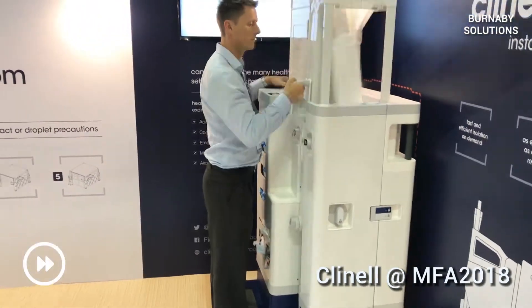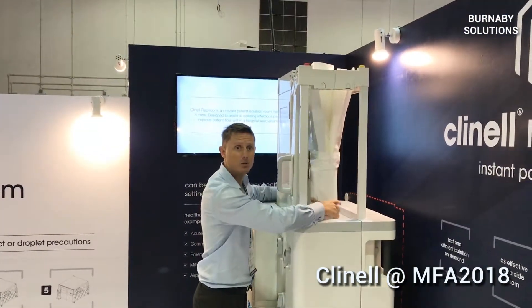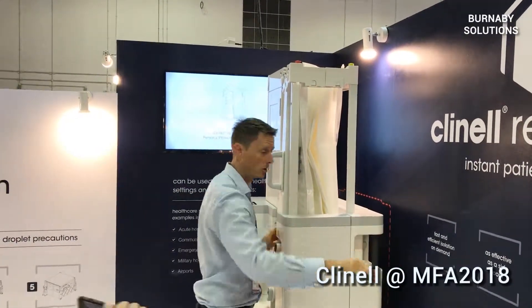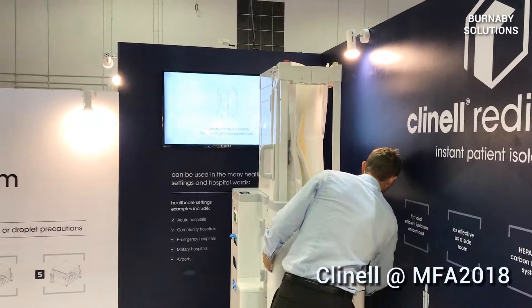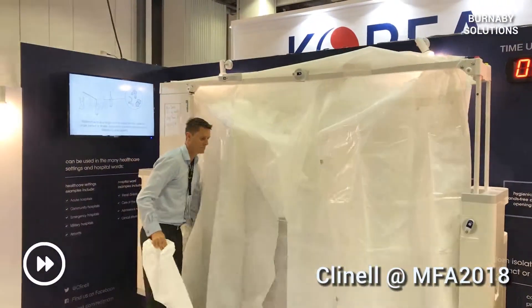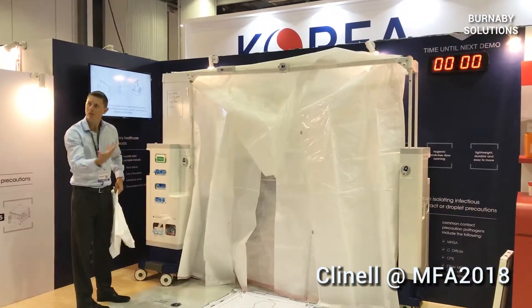I'm going to raise it up, and you'll see that the canopy wants to fall down. And I'm going to extend it across behind the bed. Now I'm going to extend the bed forward.